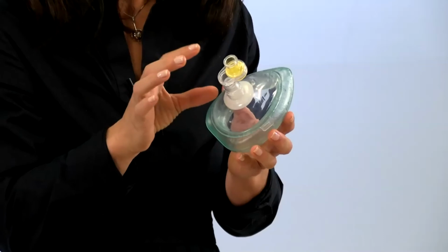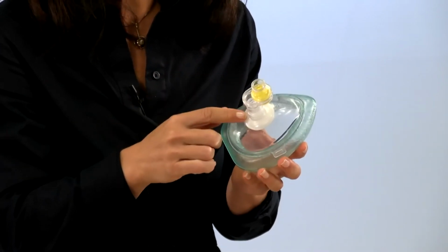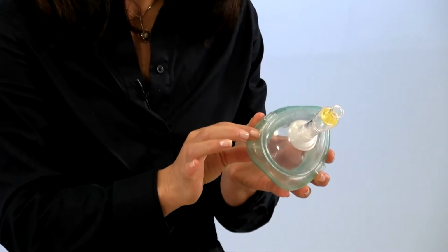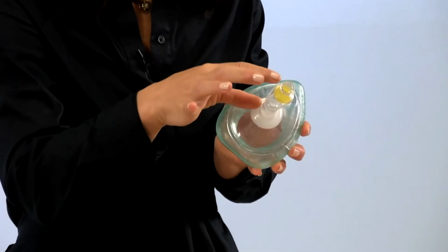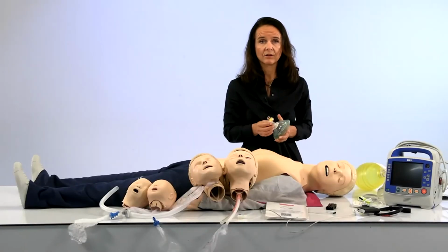In that sense, they need to change the lung more often, of course, because you're in direct contact with the lungs of the mannequin. However, if you use this pocket mask from Laerdal, you use one mask for each student, and then you just remove this top part. It has a one-way valve and a filter. You just take it off and then you reuse this part for the next, or you wash it, and then you just replace these parts. If you do that, you won't have to replace the lungs that often.